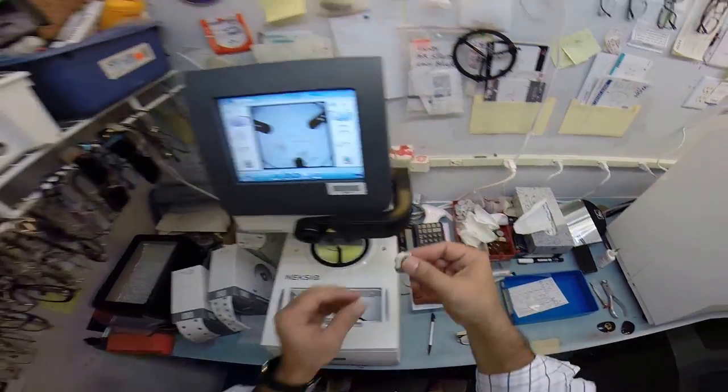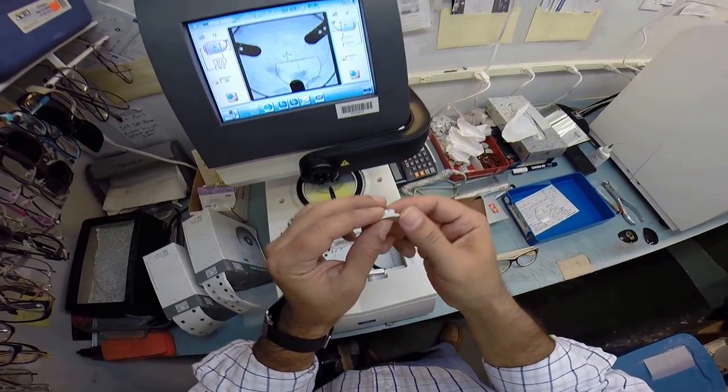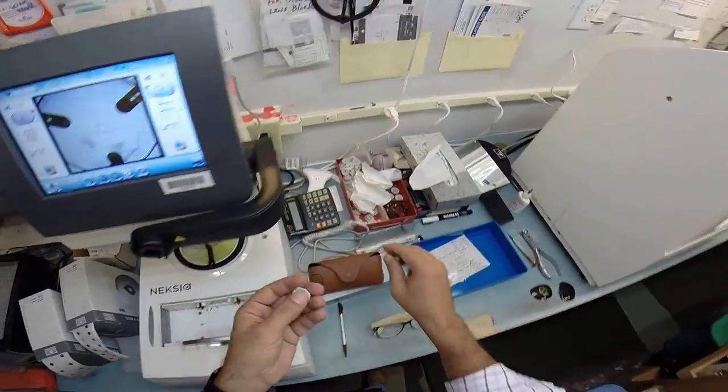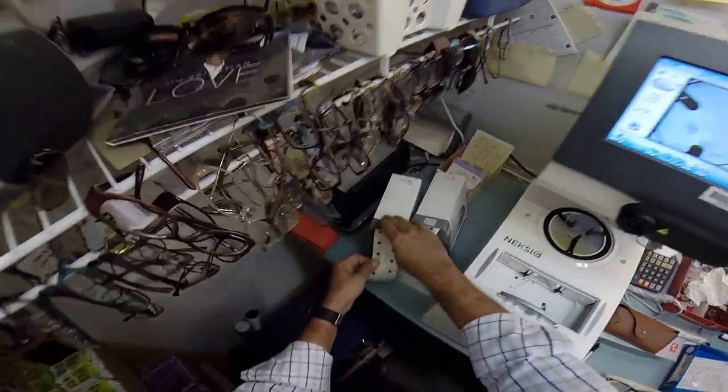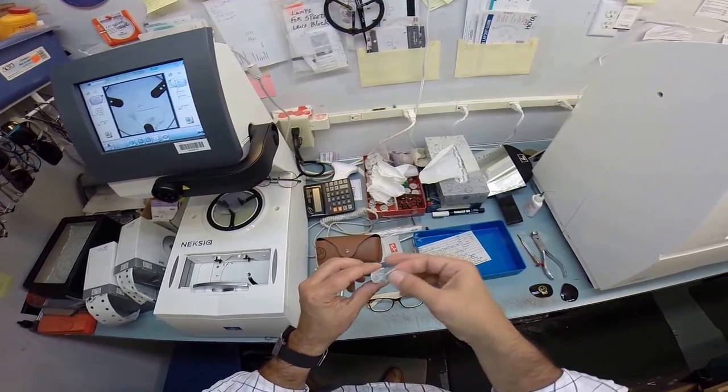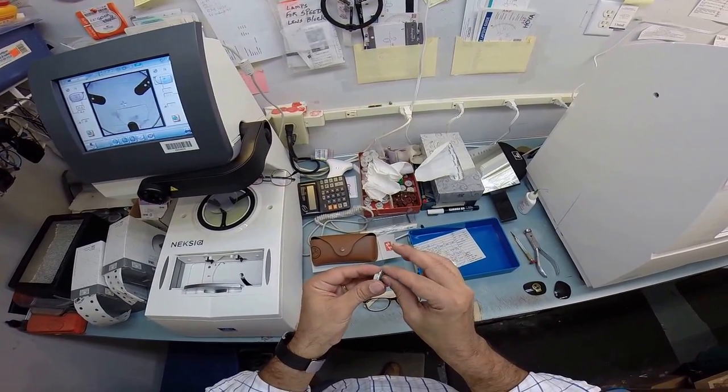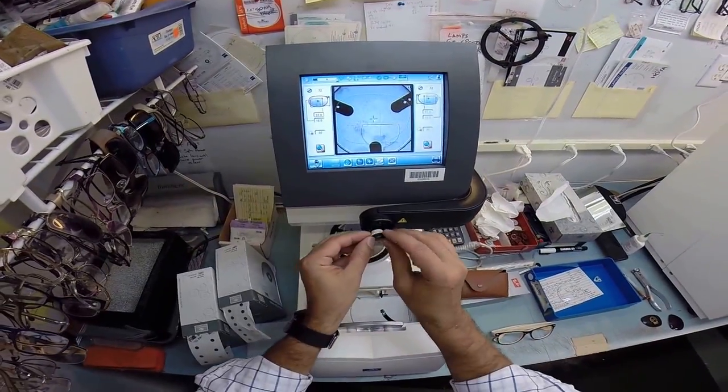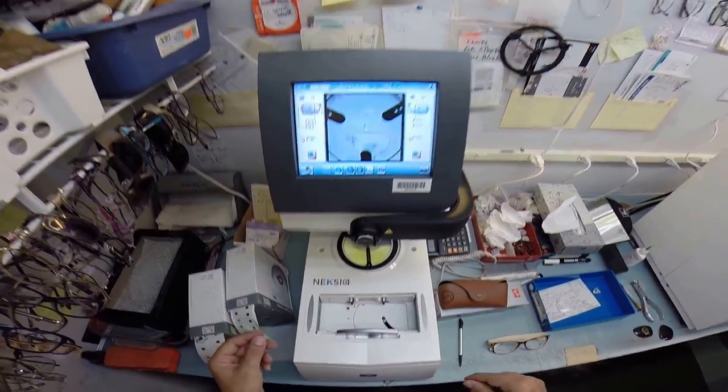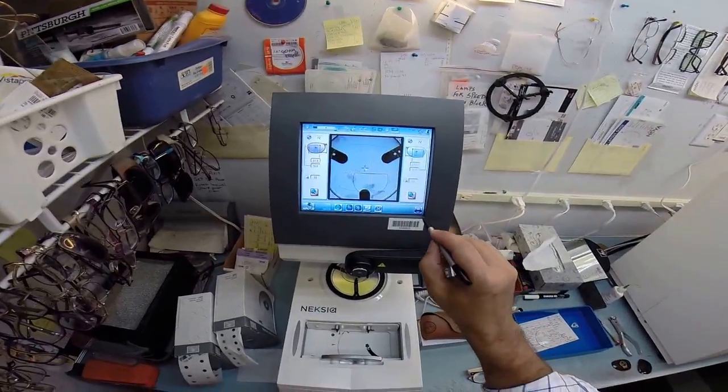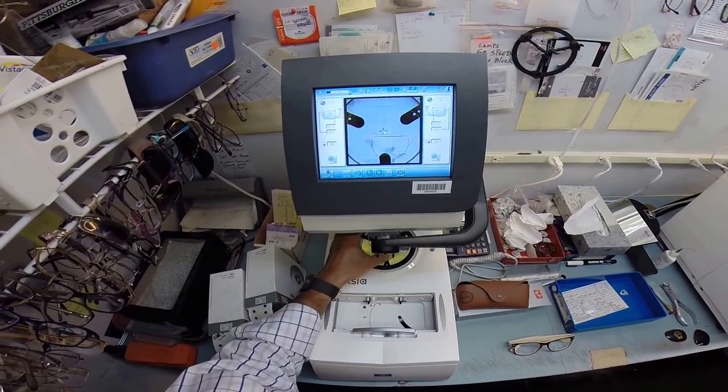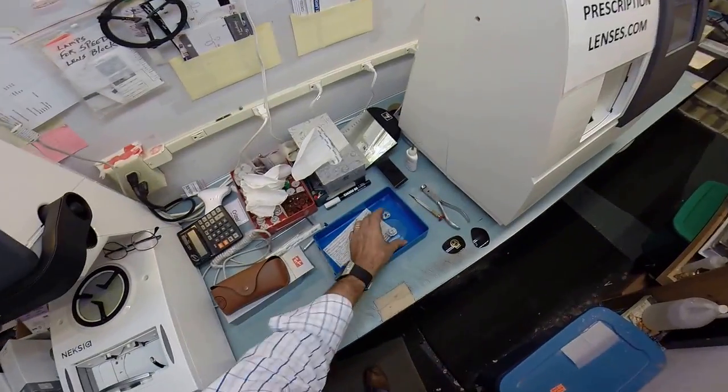Now I need to attach this to your lens. This is called a block or as I can say a Jenny from the block but I need to put a double sided adhesive sticker on there. So I'm going to put it onto one side here. Pull the little tape away and put this block into there. Held in place by a magnet and then I'm going to hit that button and it's going to go down. Put the block on your right lens.